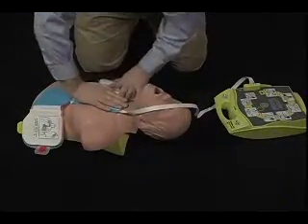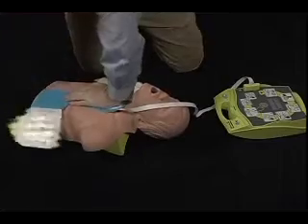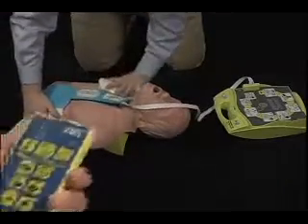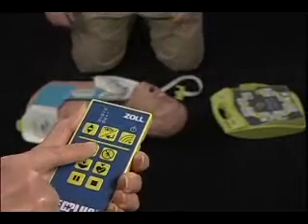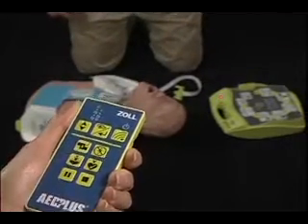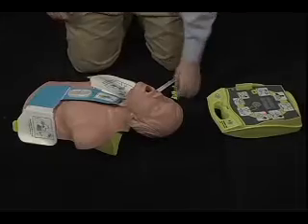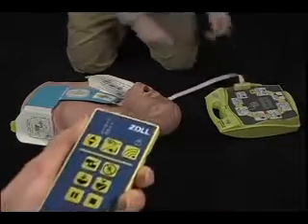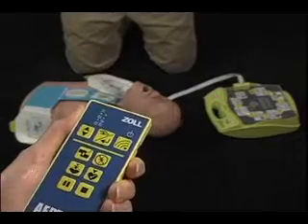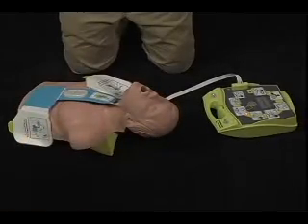During a heart analysis, you can push the pads button once to simulate a broken connection to the patient's heart. Push the pads button a second time to simulate reconnection of the pads and detection of a heart rhythm.